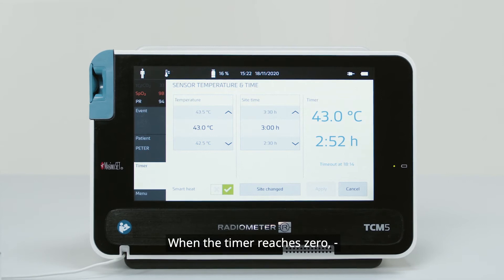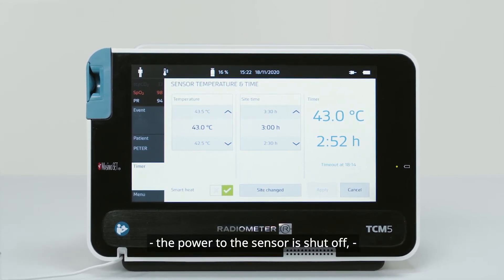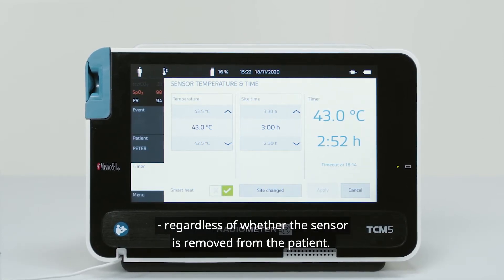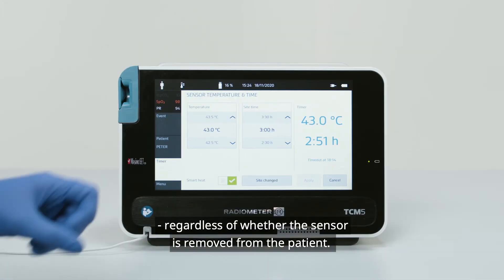When the timer reaches zero, the power to the sensor is shut off, regardless of whether the sensor is removed from the patient.